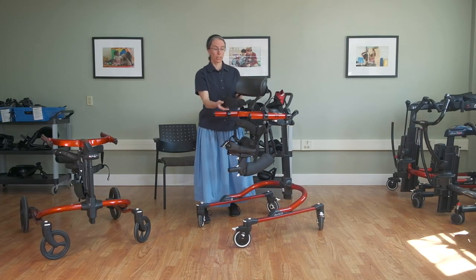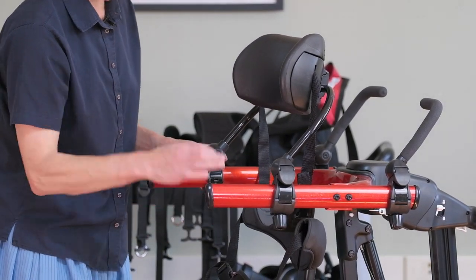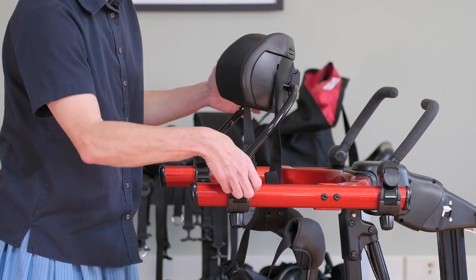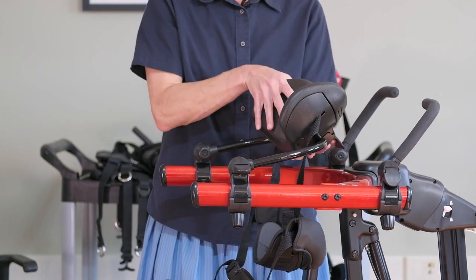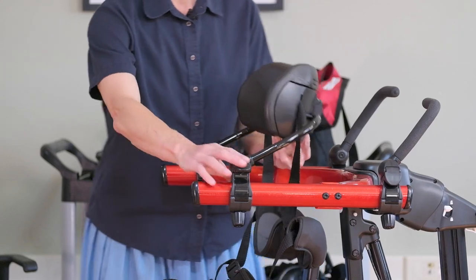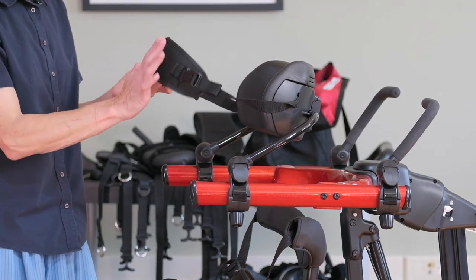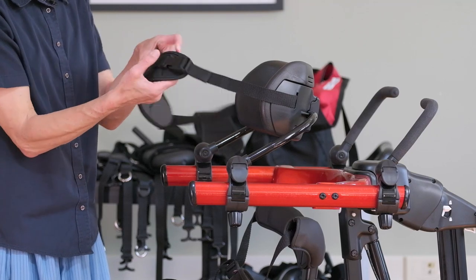This is a newer chest pad accessory. The clamp is part of the component — it's not a separate clamp — and we can move it back and forth along the frame, then use this cam lever to adjust the height and this lever to adjust the angle. You can be quite specific in where the shoulders are relative to the hips and how much angle there is on the trunk, and it's much easier to situate the student and close the back flap into place.